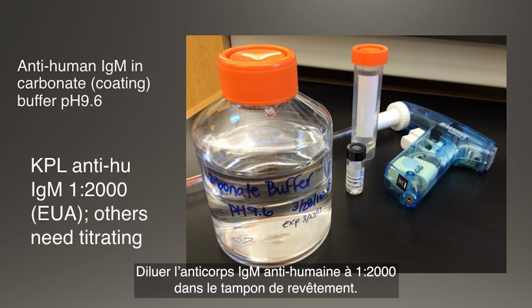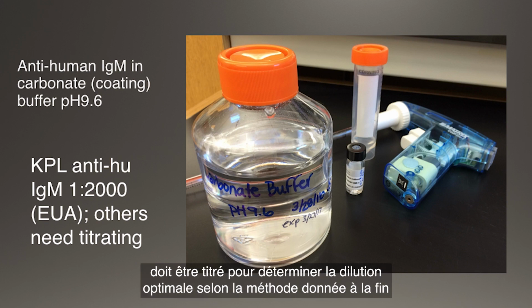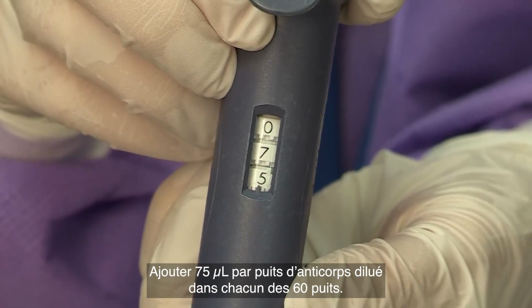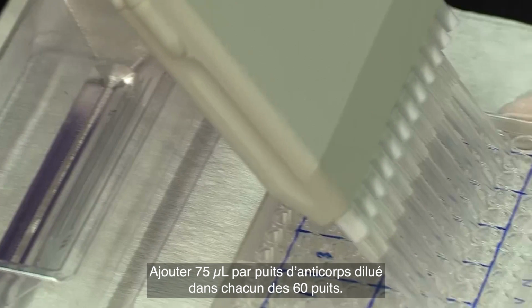The anti-human IgM used here is diluted 1 to 2,000 in coating buffer. When the reactivity of the coating antibody is unknown, the antibody should be titrated to determine the optimum dilution according to the method given at the end of the video, using the manufacturer's dilution recommendations as guidance. Add 75 microliters per well of diluted antibody to each of the 60 test wells.